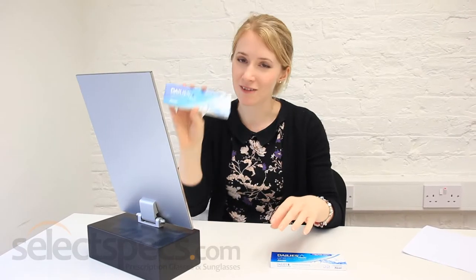I only wore my contacts for a little while yesterday, so today I am going to wear them for about 3 hours. I'm going to show you me putting them in and me taking them out. I've only done this once yesterday at the shop, so hopefully it will all go to plan and I can show you how easy contacts are. Here's my free trial lenses.